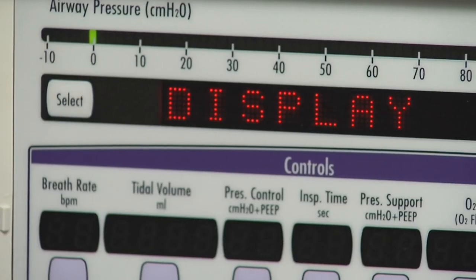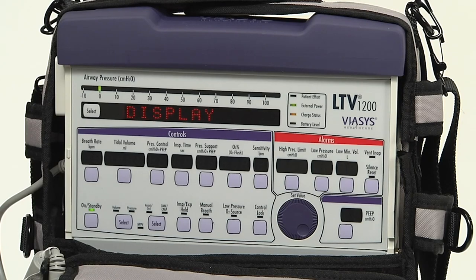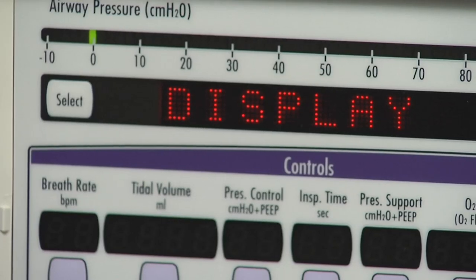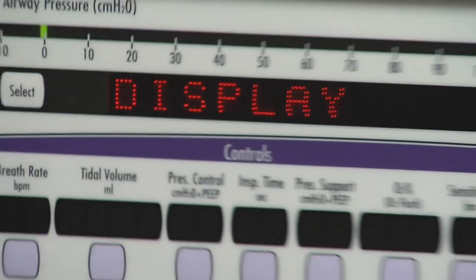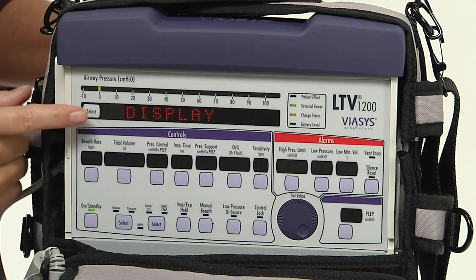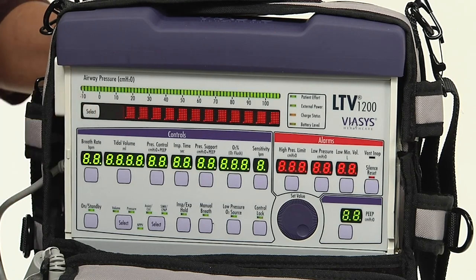When the alarm has sounded for at least two seconds, push the select button again. The audible alarm is silenced and the next menu item is displayed. The display test is now shown in the window. The display test will verify that the ventilator displays are working correctly.